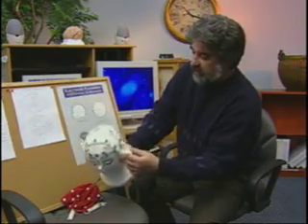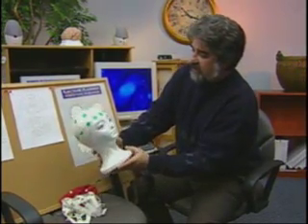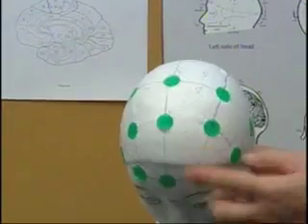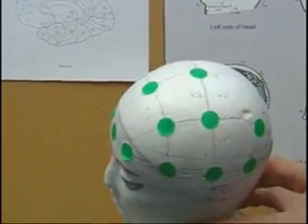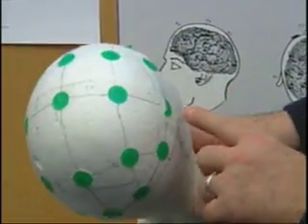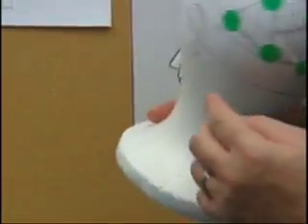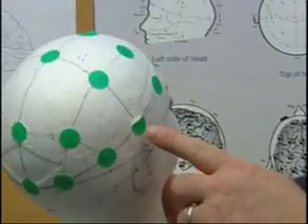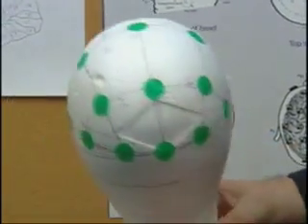Finally, for training and demonstration, you'll see what we have is a head where we've simply marked these locations directly. This is probably the easiest way to see the placement. C3, C4, the temporals, T3, T4, and so on.